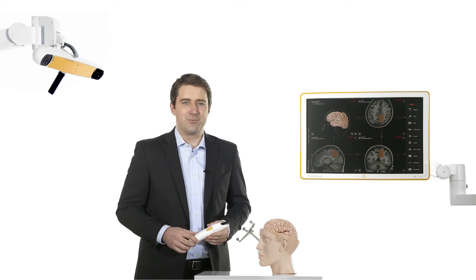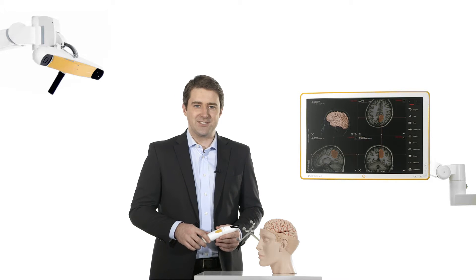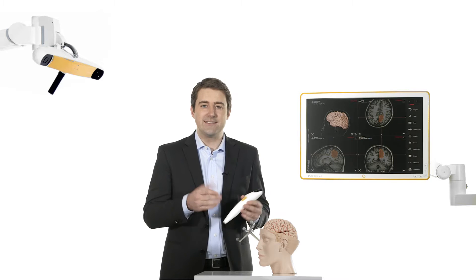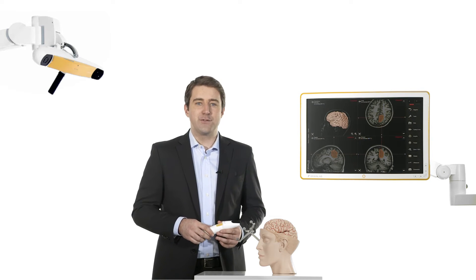This is Z-Touch. BrainLab pioneered patient registration without fiducials over a decade ago and Z-Touch remains the only pointer for touch-free registration.